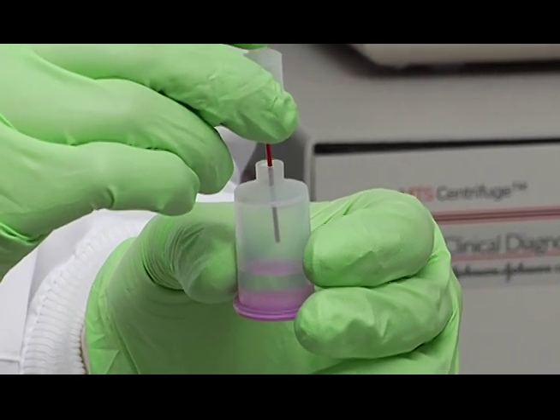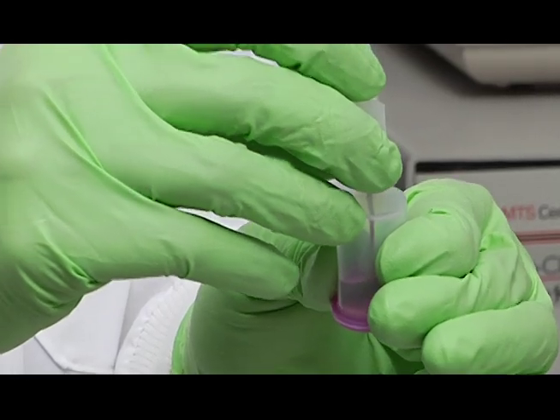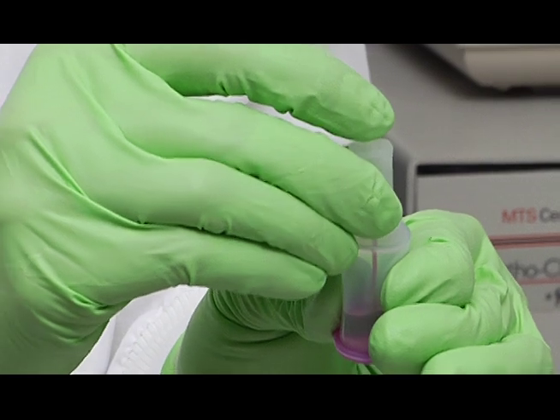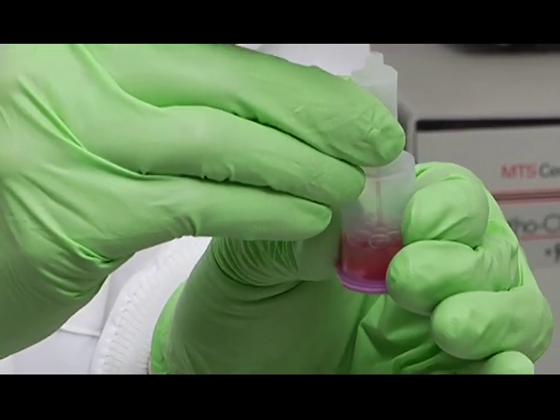Then you can put your finger over the end. When it's in this position, squeeze the reservoir. Then seat it down in here like this. Take your finger off and then you're going to slurp it down.